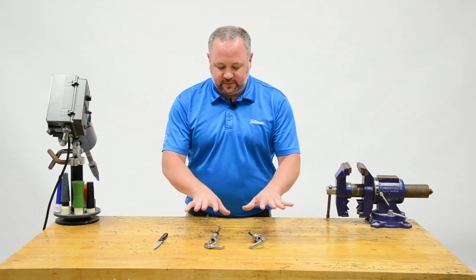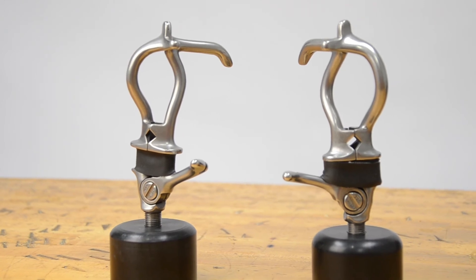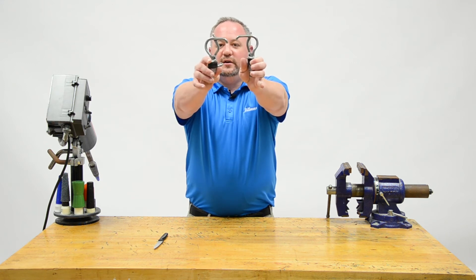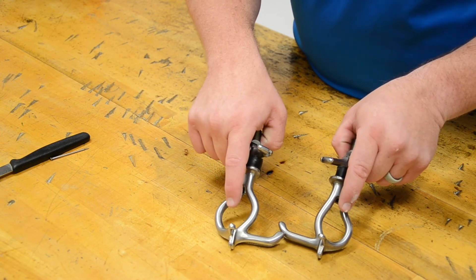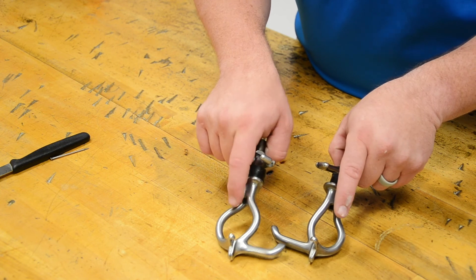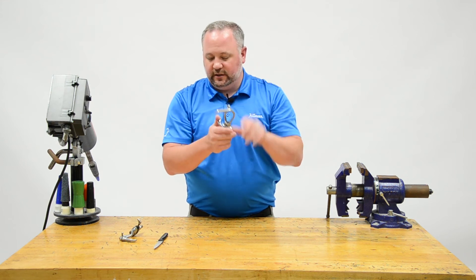For patients who are going to be doing heavy-duty labor, you want a hook that's really appropriate for that. We usually start with the number seven hooks, which come in two sizes: the seven and the seven large opening (7LO). The 7LO has a much larger hole in the center for patients picking up large tools like a hoe, rake, or shovel with a large-diameter shaft. The standard seven has a slightly smaller opening but is probably the most commonly picked and offers a lot of functionality.